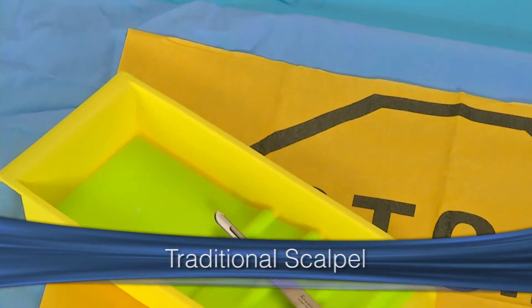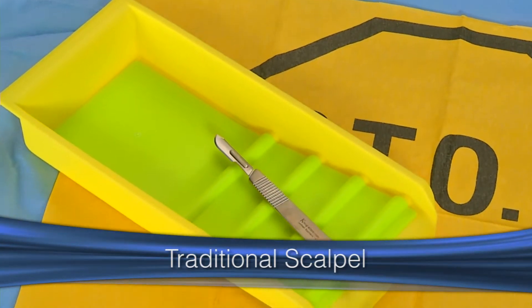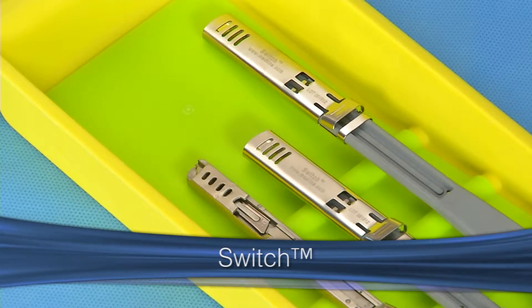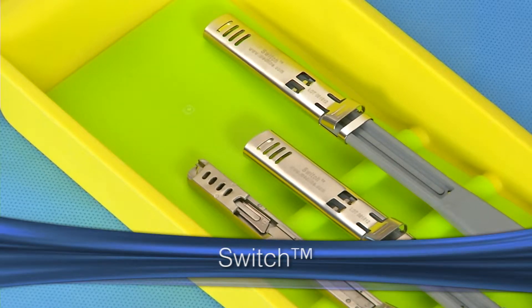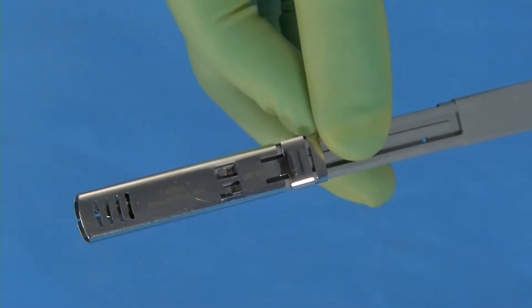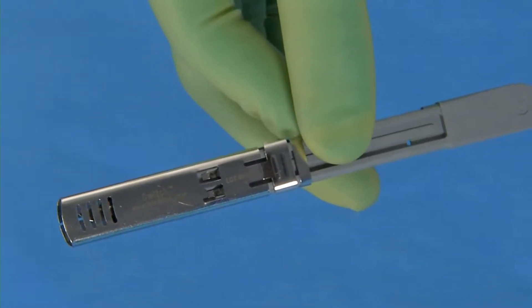Old scalpels don't cover the blade when not in use, but with a fully reusable switch safety scalpel handle from Medline, a protective metal shield locks into place when not in use. The switch reusable safety handle is designed to work for both left and right-handed surgeons.